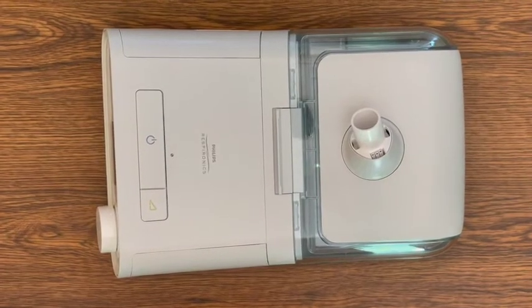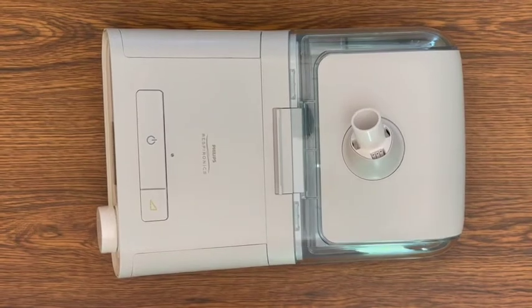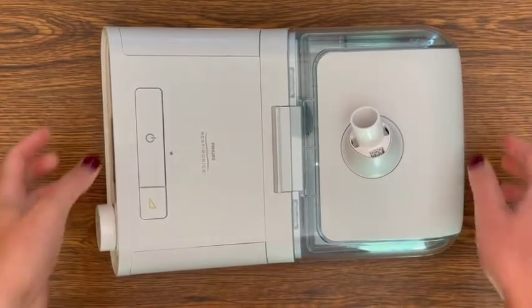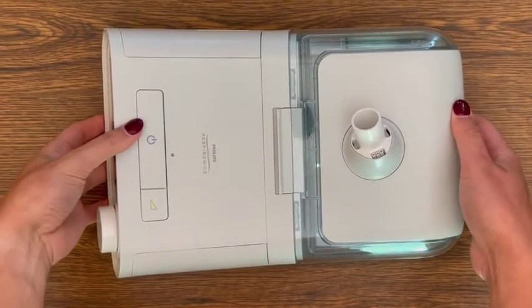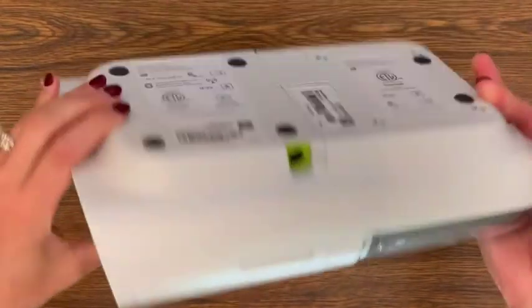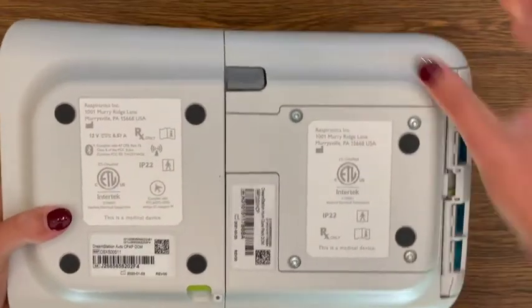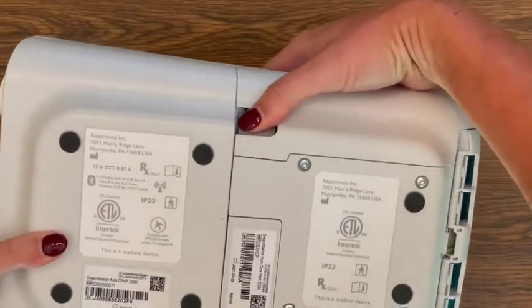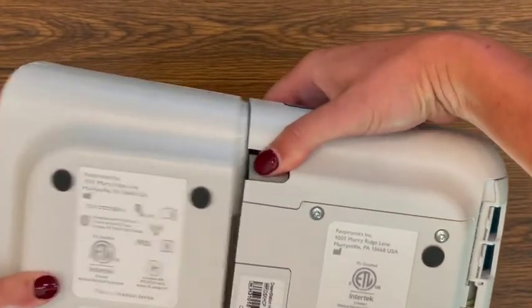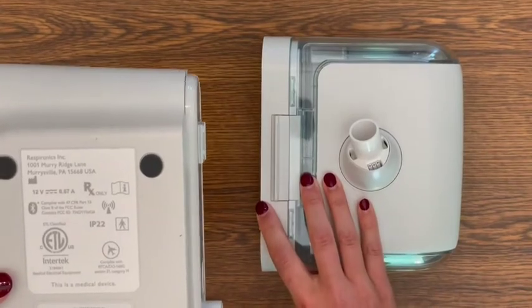Ensure you remove any optional accessories before looking for your device serial number. This could include a heated humidifier or battery pack, which have separate serial numbers that should not be used on this registration website.